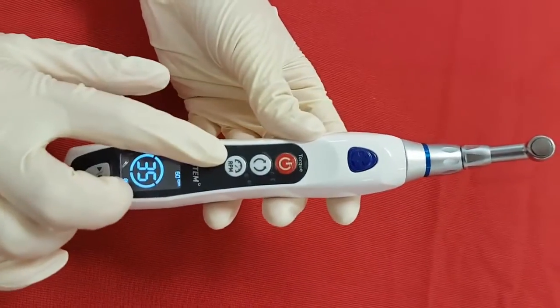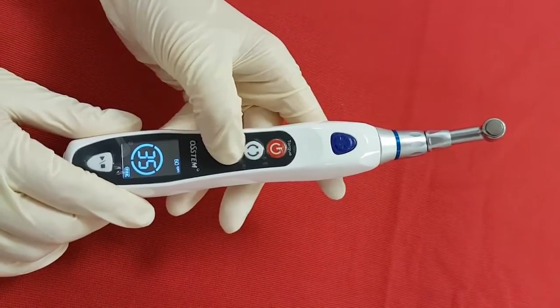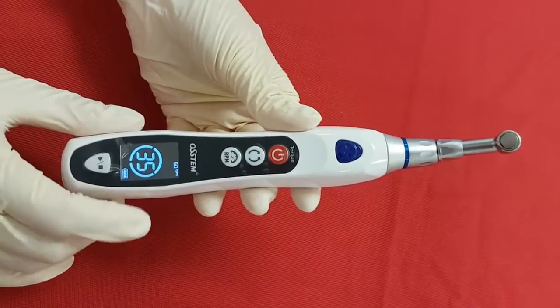Next, the speed control button. The lowest speed is 15 rpm and the highest is 60 rpm. When you press this button, it increases by 15 rpm at a time, and you can check the speed change at the top of the LCD.